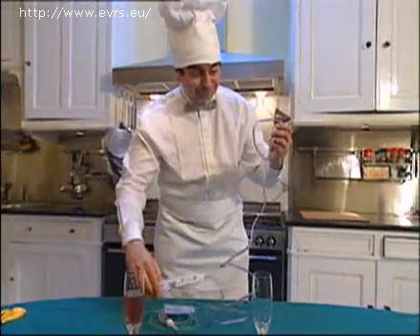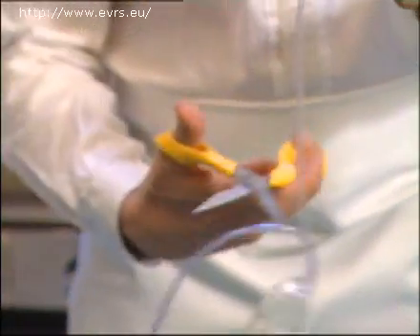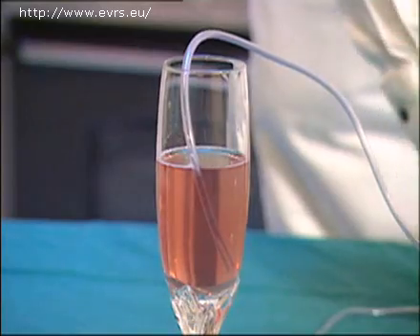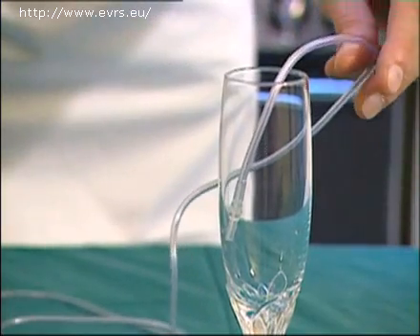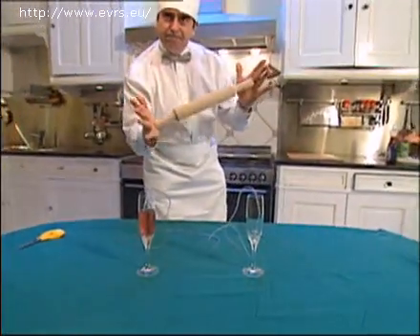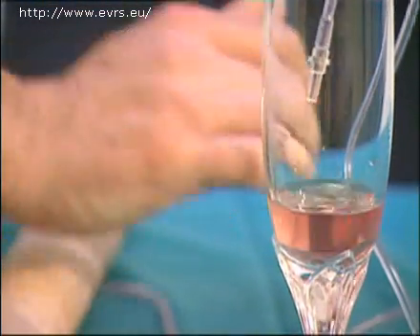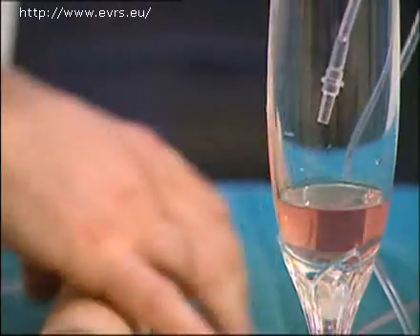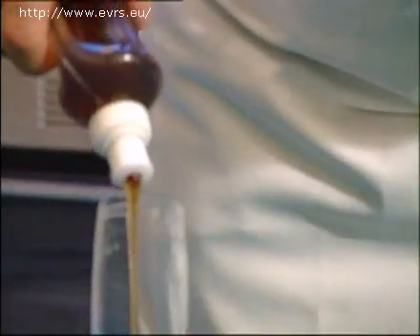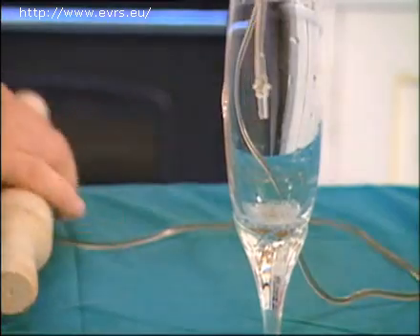This French culinary expert will easily prove this. Here we have some vitrectomy aspirating tubing, cut and placed in a glass of rosé wine of very weak viscosity. In order to simulate the action of a peristaltic pump, he will use a rolling pin. For a certain number of turns of the rolling pin, he is going to pump a certain amount of wine. If he replaces this light wine with a heavier liquid, like maple syrup, and tries again, for the same number of turns of the rolling pin, he will actually pump the same quantity of maple syrup as the wine.